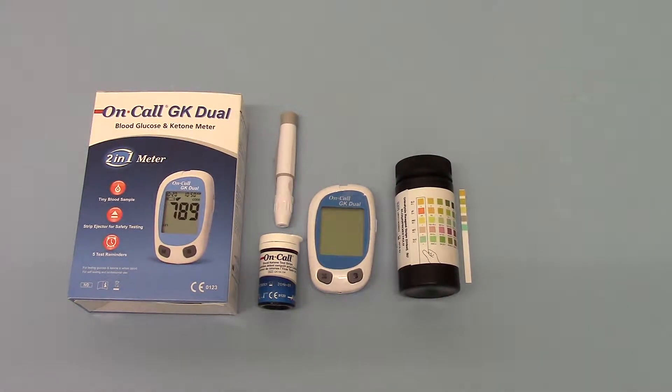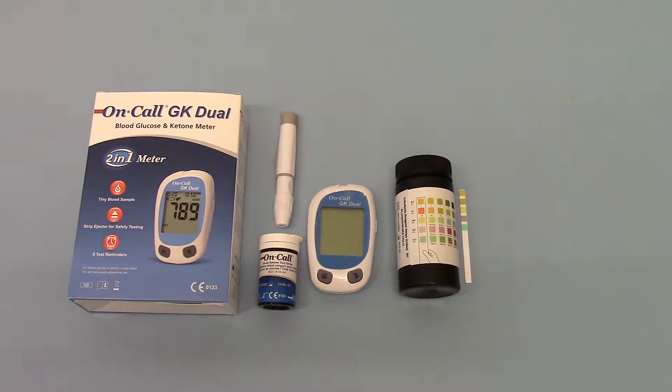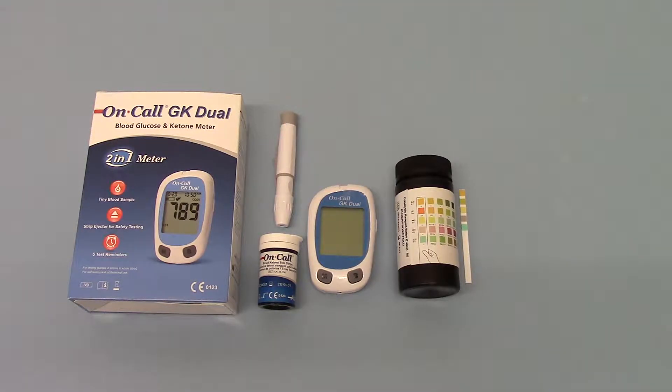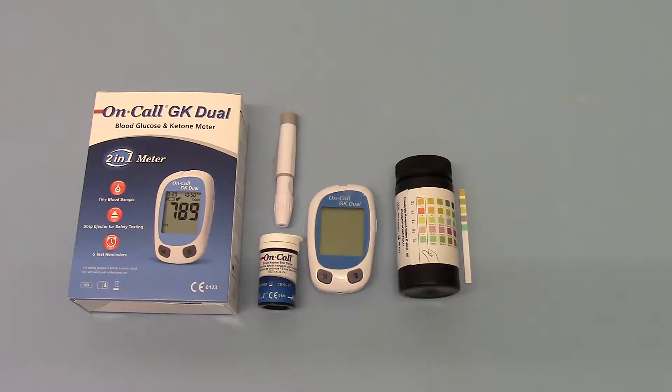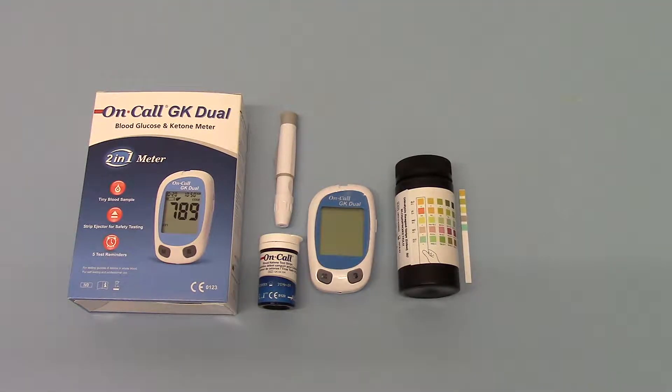Welcome to this product demonstration video where we're going to run you through the differences and options that you've got for testing ketone levels in body fluids.